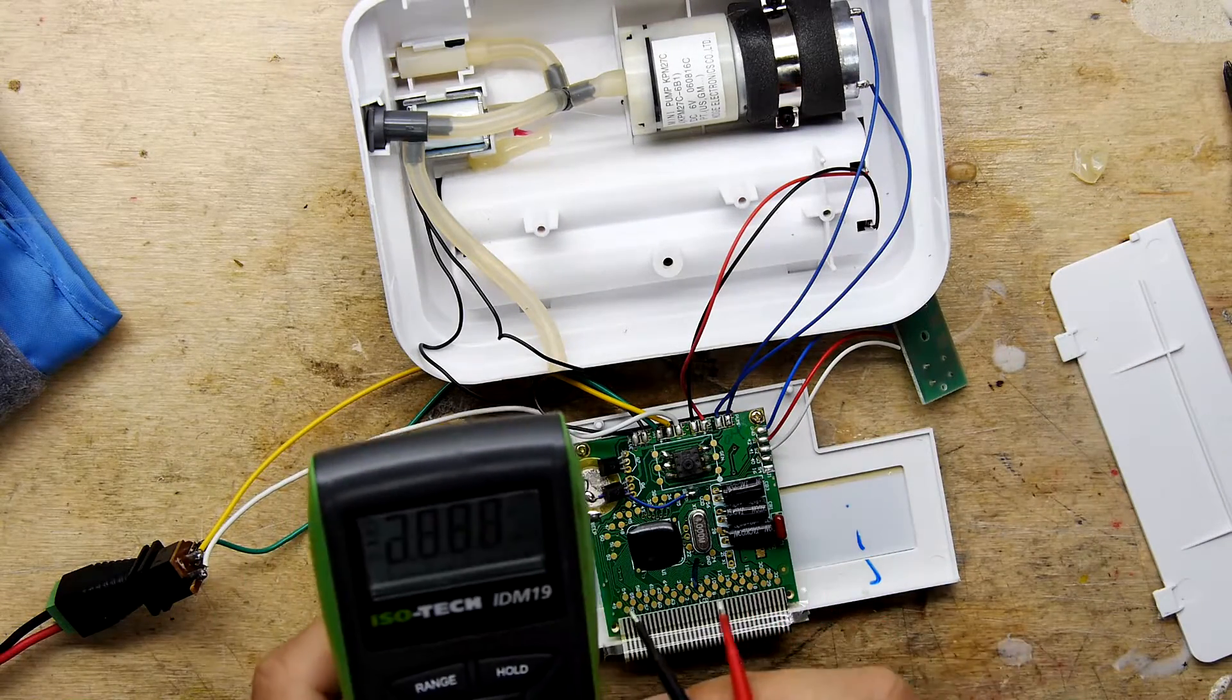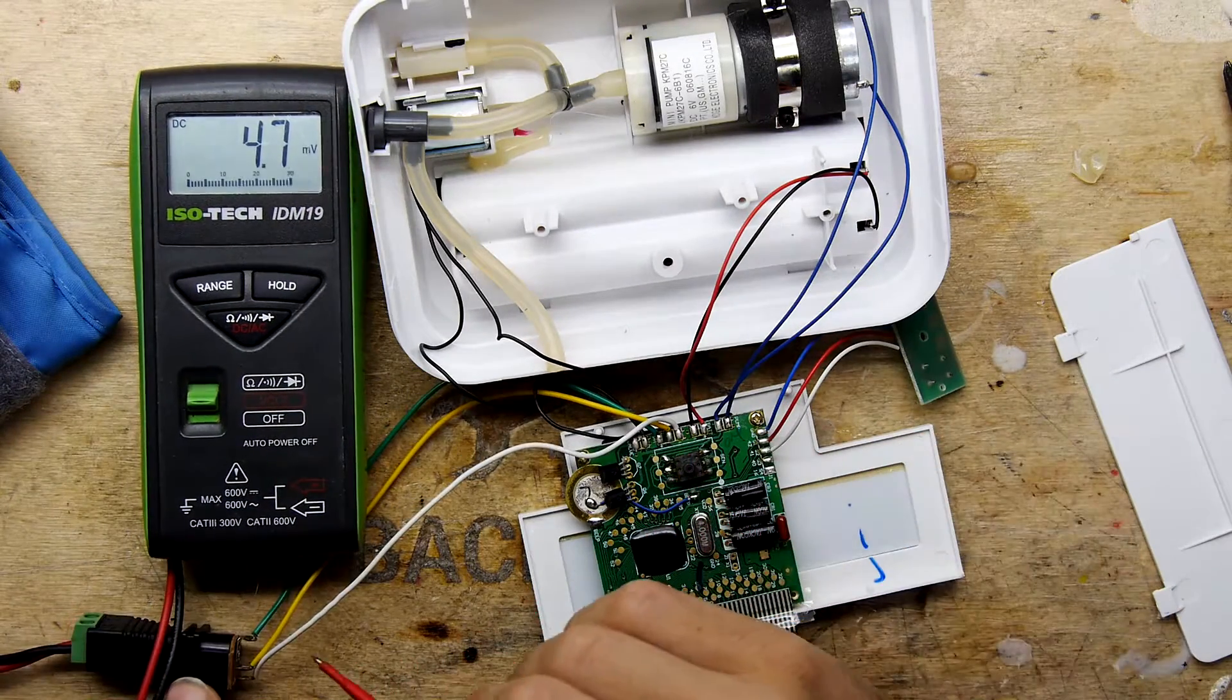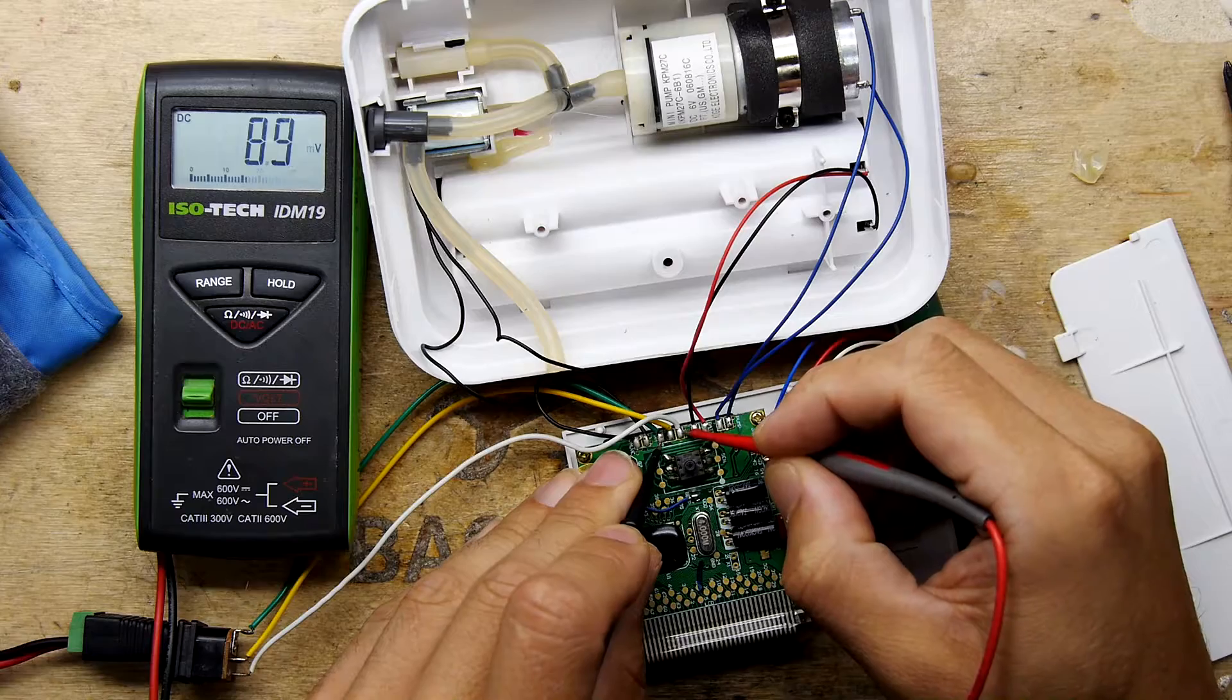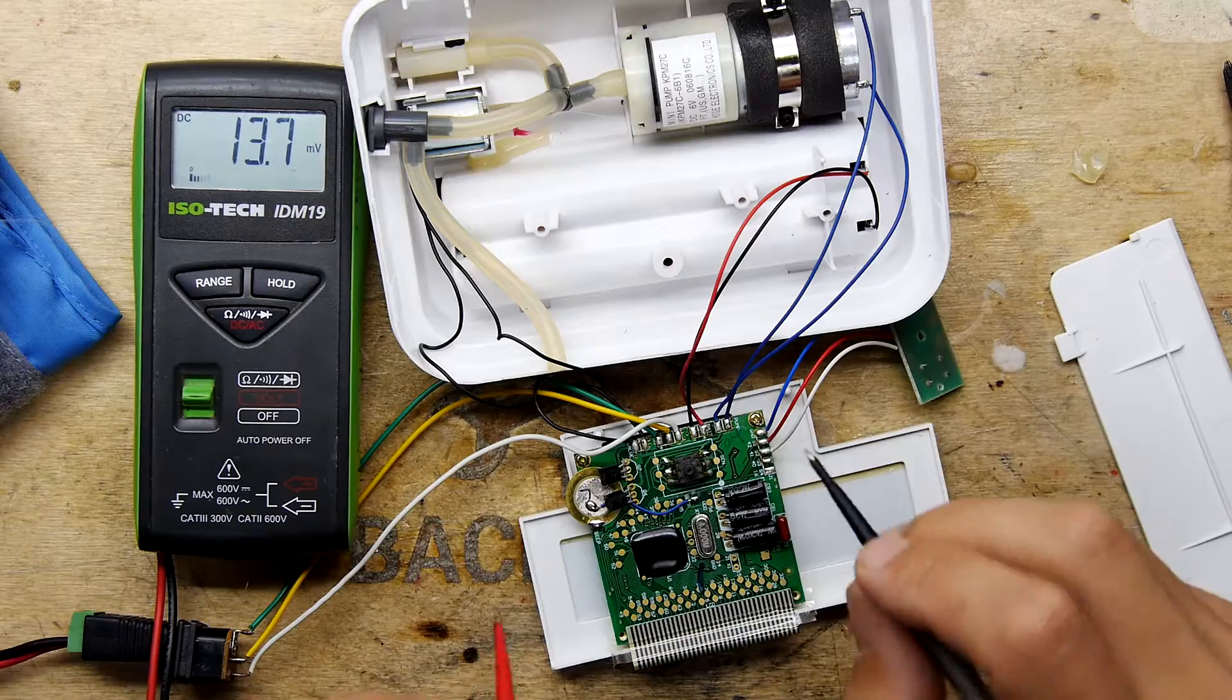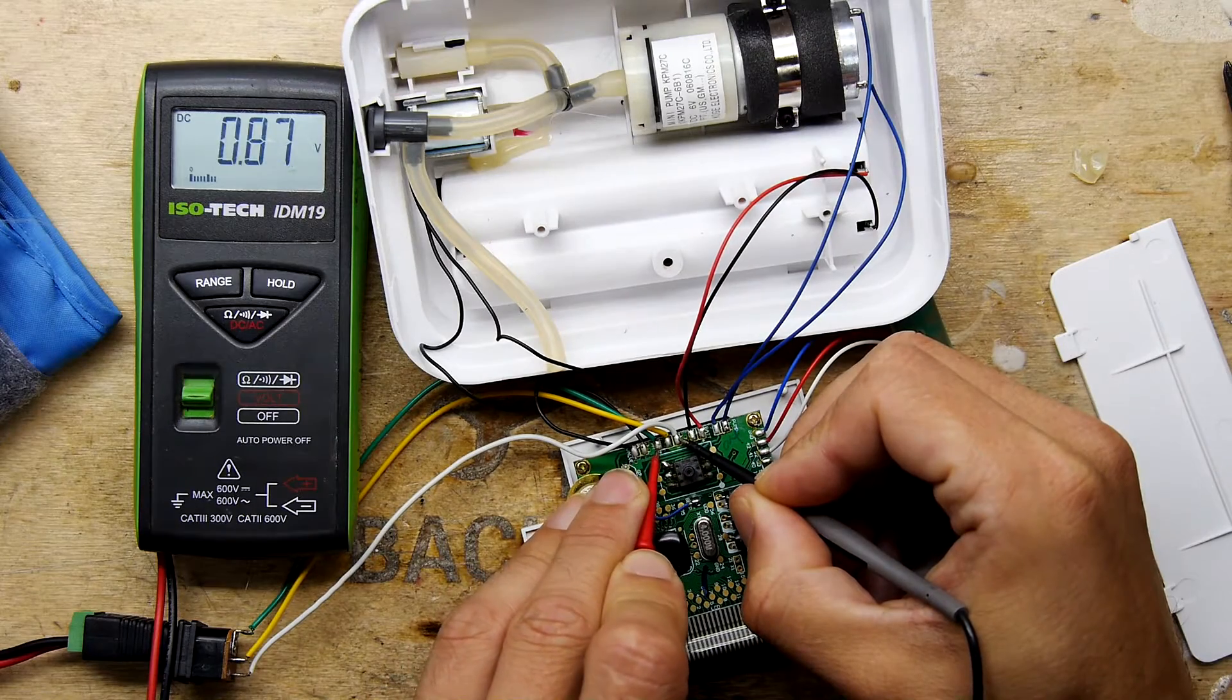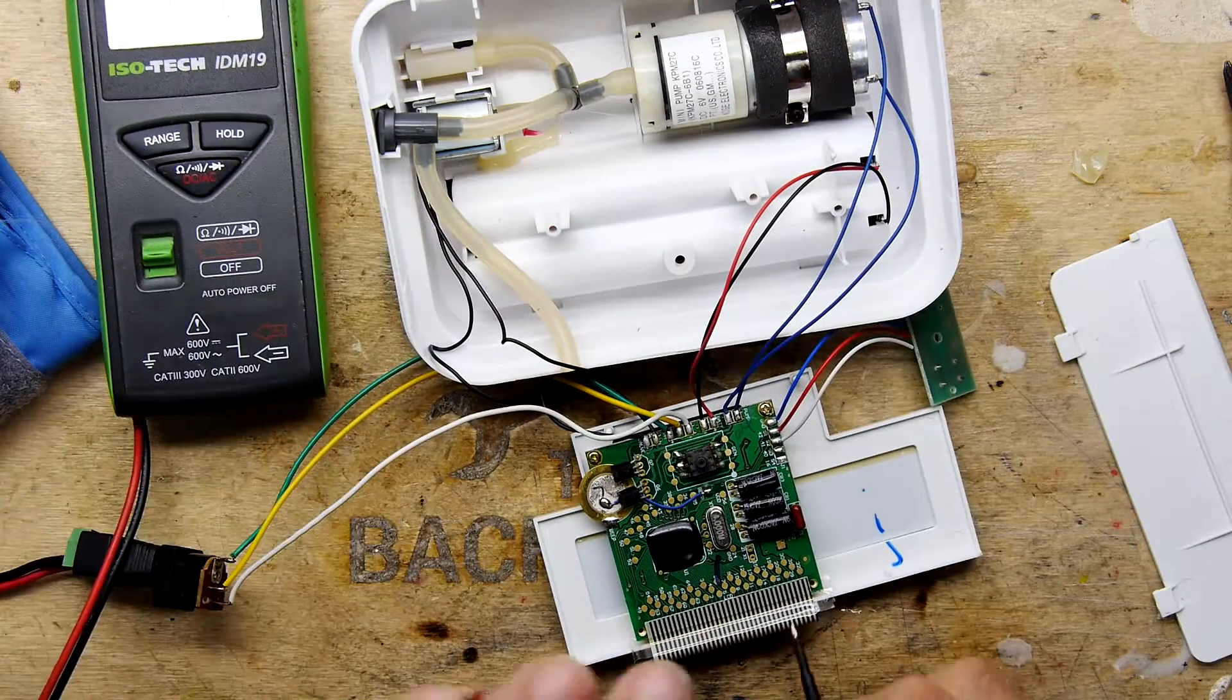Let's have a check of the actual board itself. We've got our meter here. We've got three wires, a yellow wire, a green wire, and a white wire. So let's see what we're going to go across those wires. So the white wire is ground. The green wire is certainly live. What does the yellow wire do? That's an interesting one. Is the yellow wire like a power detector or something? Must be very intriguing to look at that.